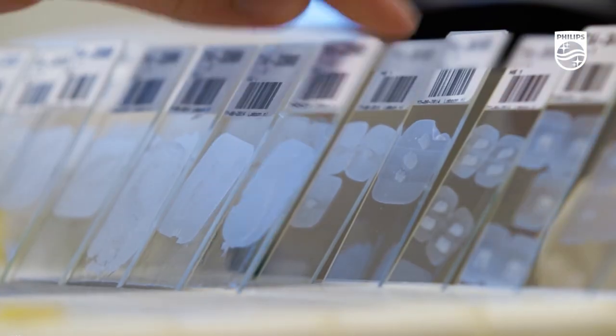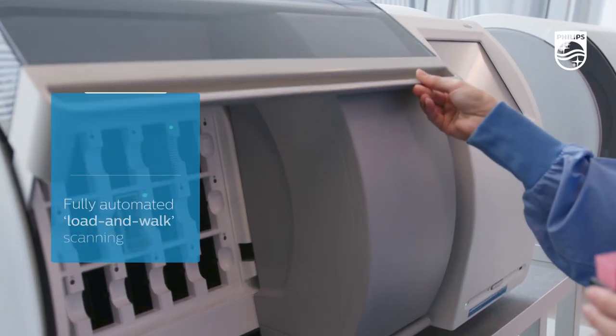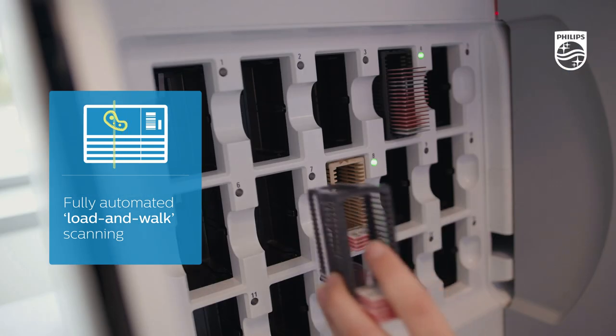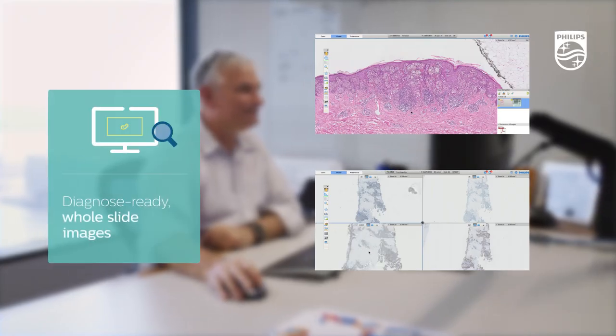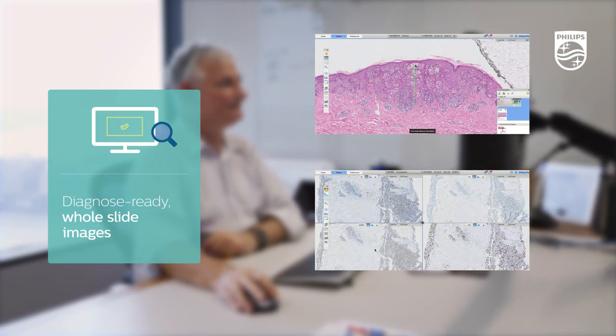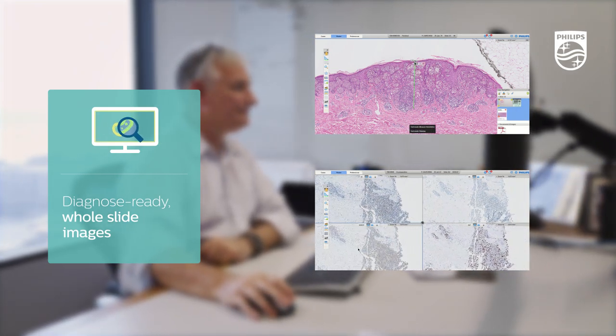After slide production, the ultra-fast scanner enables fully automated load and walk-away scanning with minimal operational intervention, delivering diagnose-ready whole slide images ready for dispatch and review within the image management system.